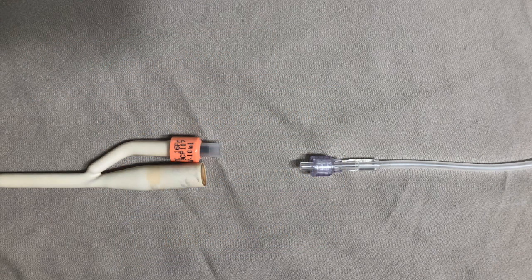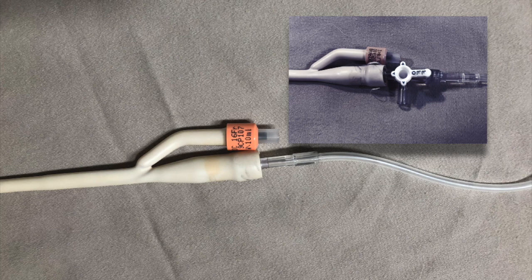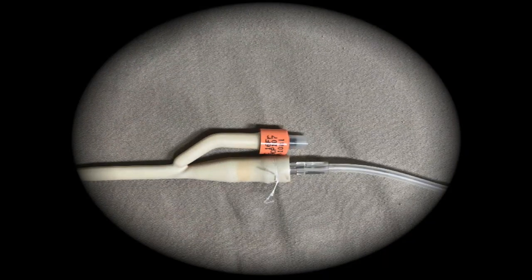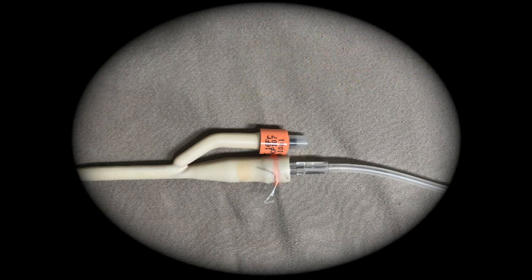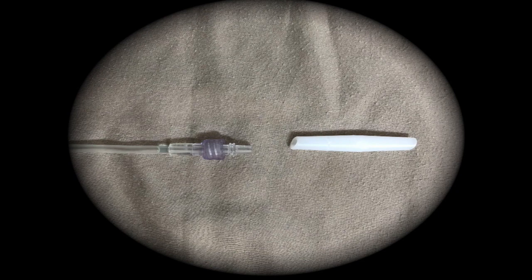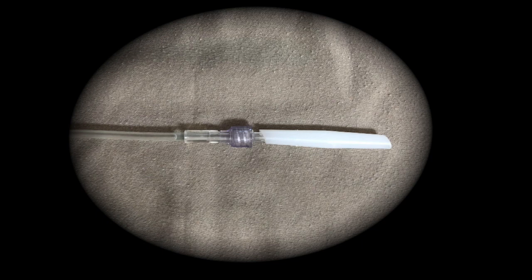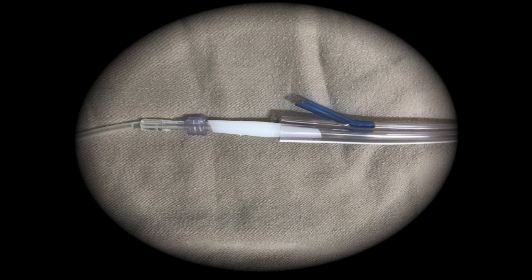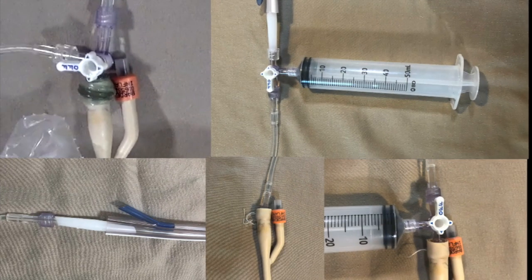For example, you can shove the hub of some IV tubing or three-way stopcock into a Foley catheter. It fits really well, but you also have to tie something around it to make sure you don't have leaking fluid — this is important. Here's another system using an NG tube adapter, and it fits right onto the IV tubing really well. You can put the other end in some sterile NG tubing or even connect it to an IV tubing extension kit. There are a million ways to do this, but you have to have it in mind ahead of time.